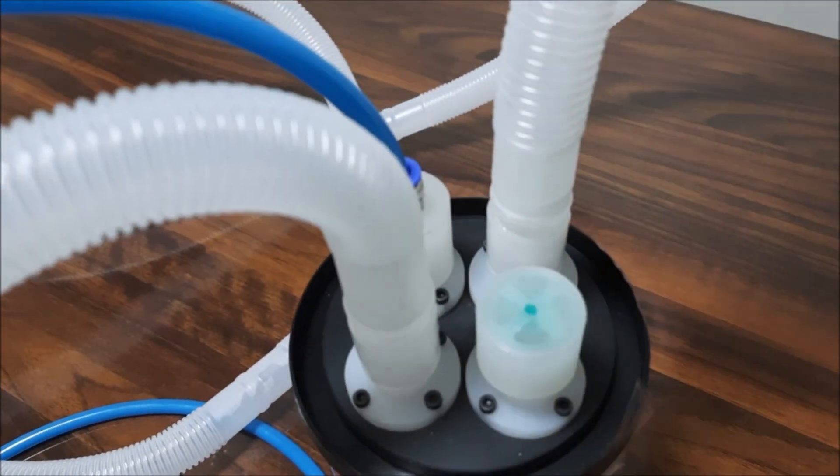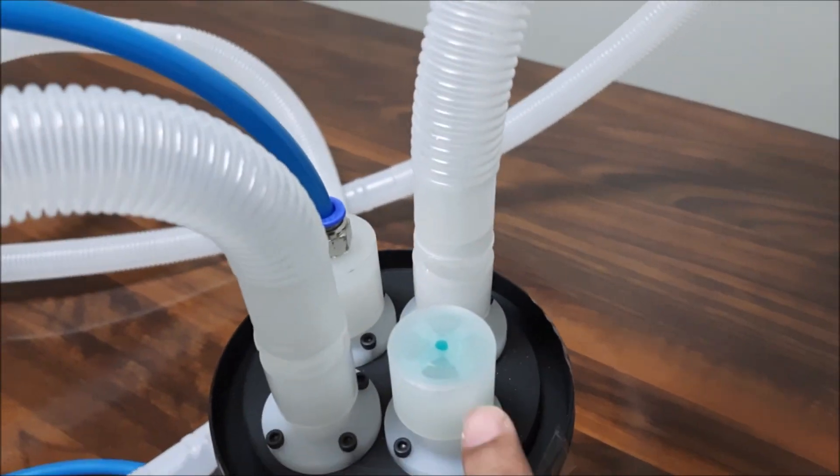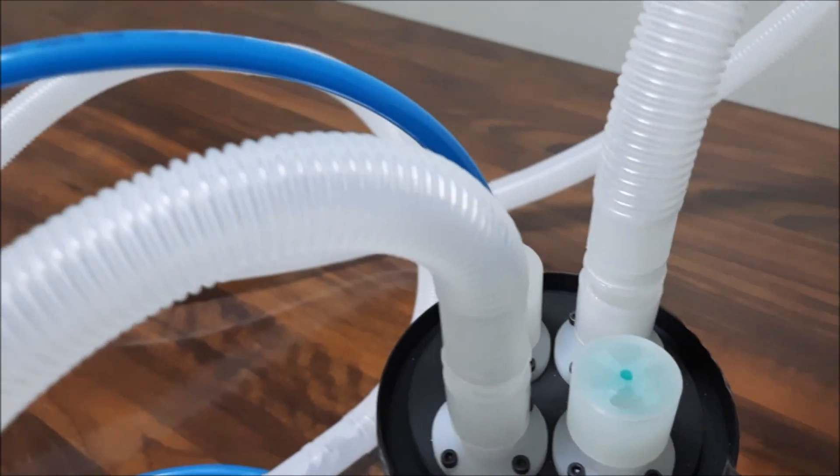There is an inlet and outlet valve with a filter inside. This is a pressure release valve and this is the oxygen inlet. The blue color pipe is for oxygen inlet.